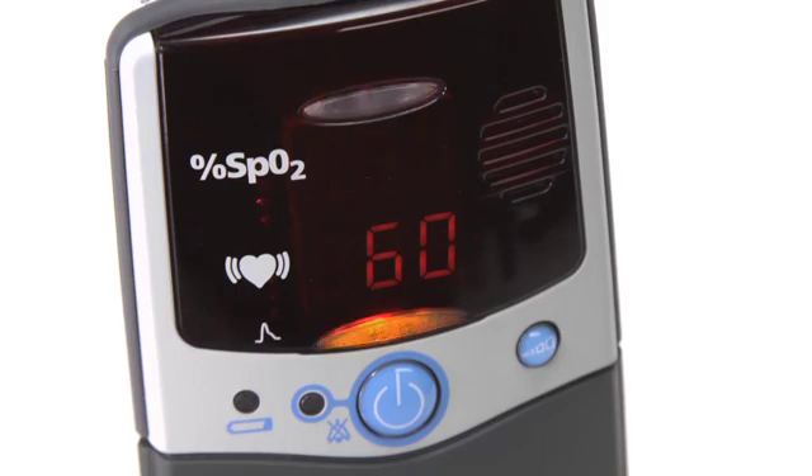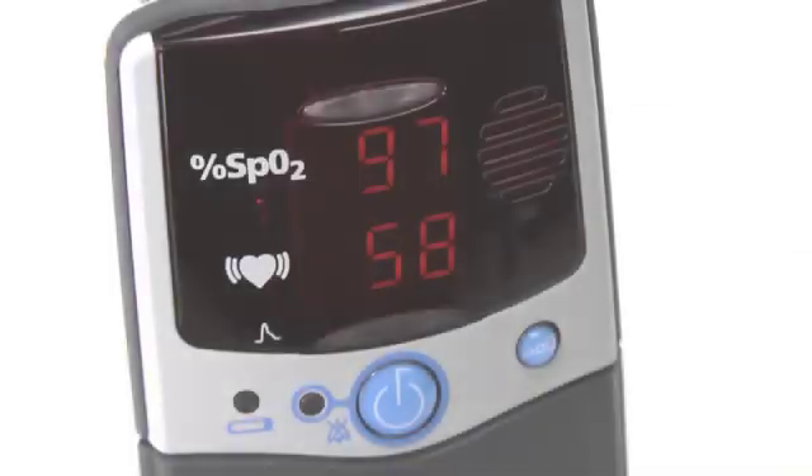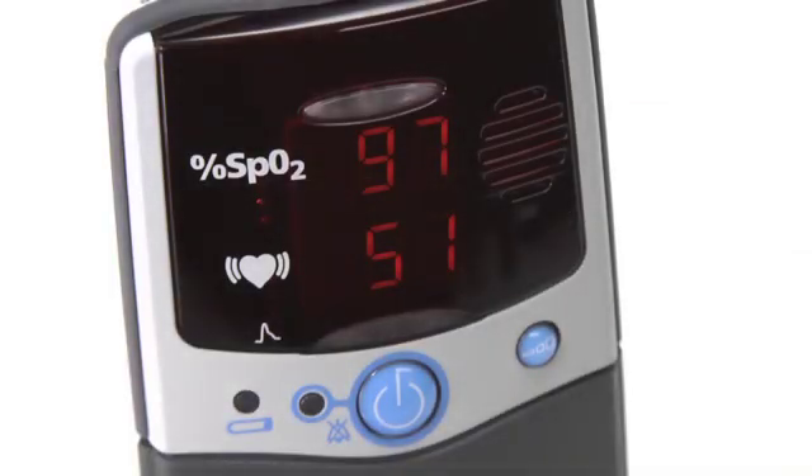For the 2500A model, your oximeter has audible and visual alarms that can be set to signal if either oxygen saturation or pulse rate exceed the predetermined ranges. If either of these occurs, the oximeter will sound a 3-beep, 2-beep audible signal that repeats every 10 seconds.